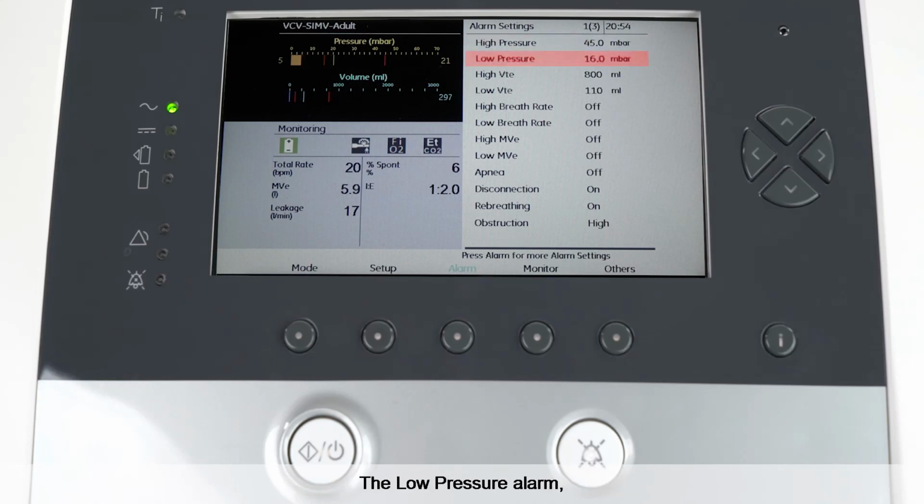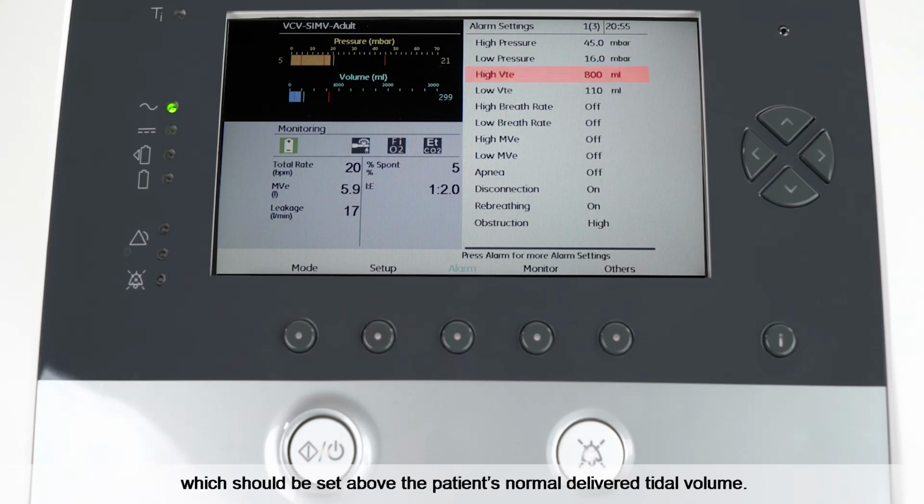The low pressure alarm, which should be set under the set inspiratory pressure or minimum pressure setting when in a pressure mode. This alarm will generally react to scenarios of high leak or disconnection, where the device cannot achieve the treatment pressure. High tidal volume alarm, which should be set above the patient's normal delivered tidal volume.